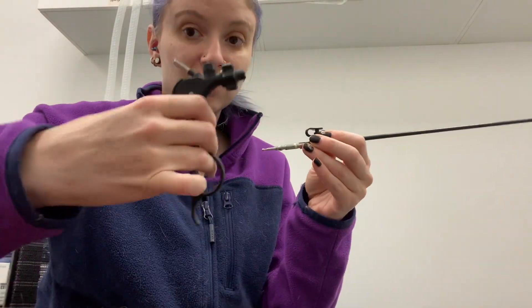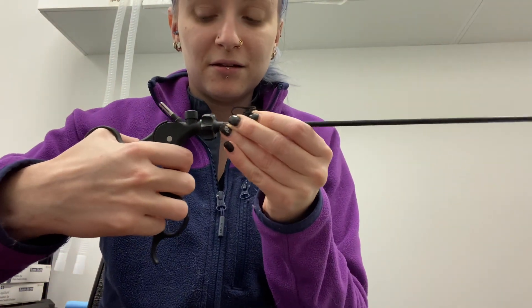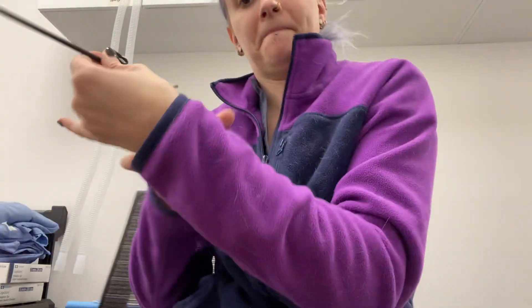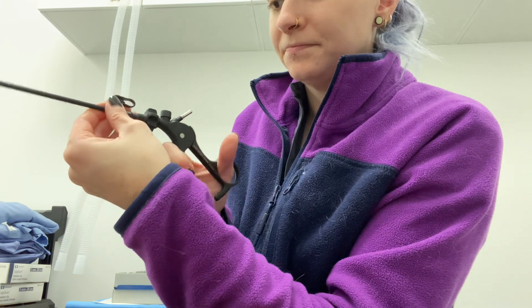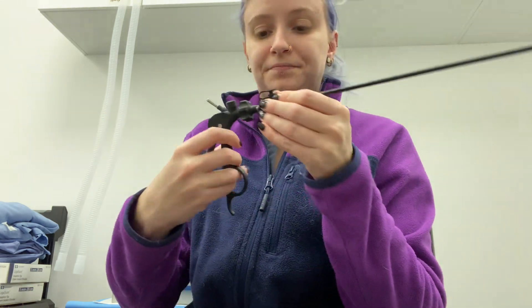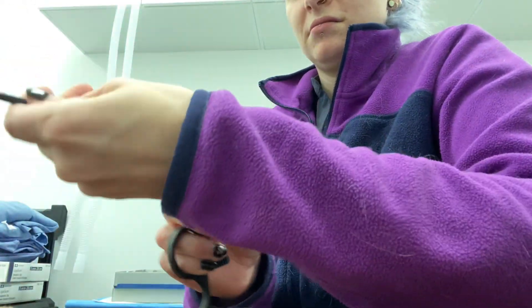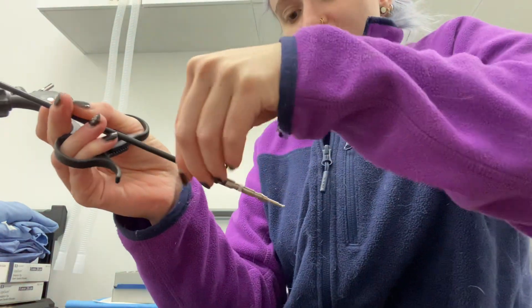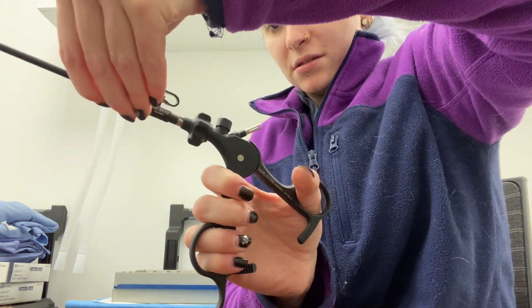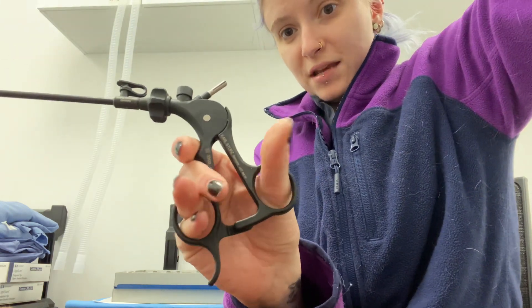To get this piece attached to the handle, the handle has to be open — it will not work if the handle is closed. I generally hold it open about here. You're going to stick it straight in, then grasp and release, and eventually it will catch. Stick it in and then close — you push in, close, and you're locked in just like that.